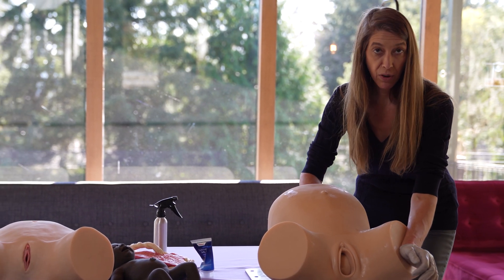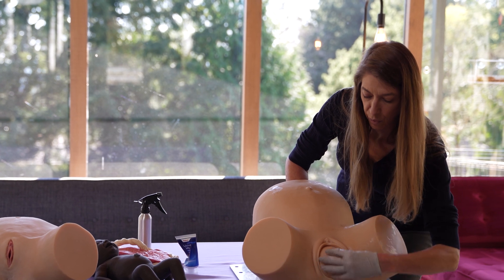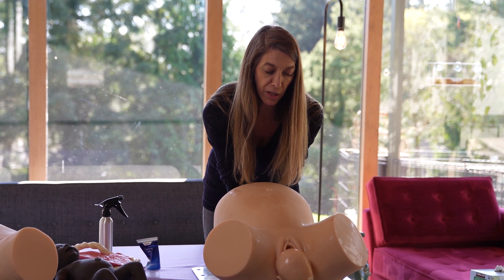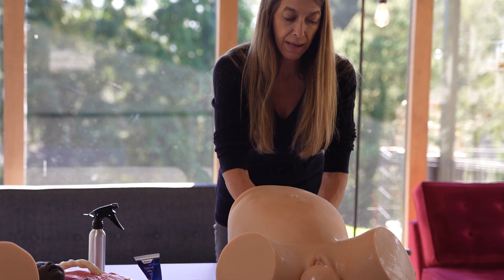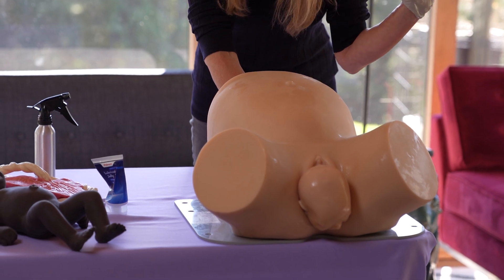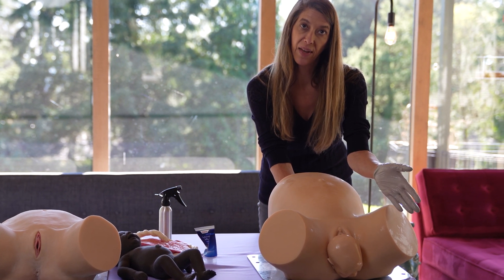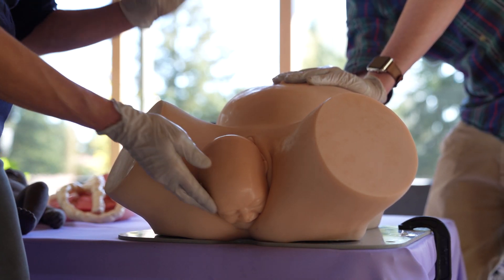Since we never know we're having a shoulder dystocia, we're still practicing our same maneuvers. You can stretch the perineum, preserve it, or slow down the fetal head. Once the baby is out, I choose the shoulder dystocia direction and if I give baby's chin a poke it'll give them that indicator, or you can leave it straight down if you want them to assess it themselves — and then they get the turtle sign. At this point they start their procedures: we try McRoberts, McRoberts hasn't worked, we've identified the dystocia, we have the timing. You can do suprapubic pressure on the model and it will work, so it can train for that. First they want to assess which way the baby is facing so they can direct their assistant to give the pressure accordingly.